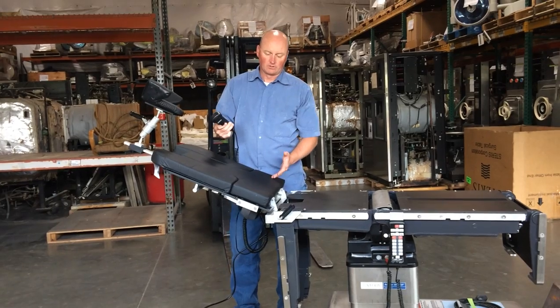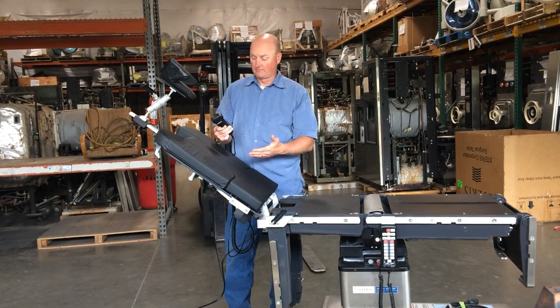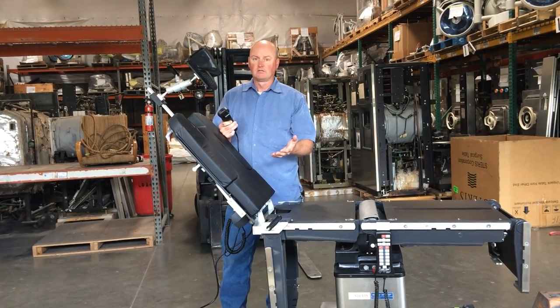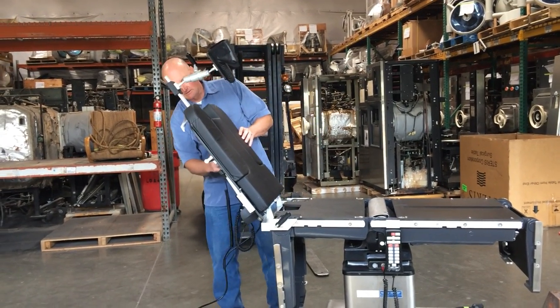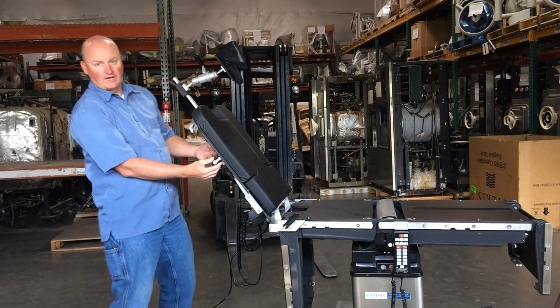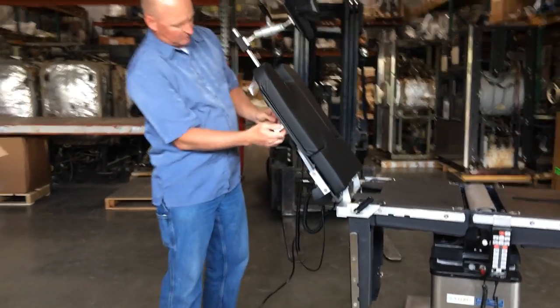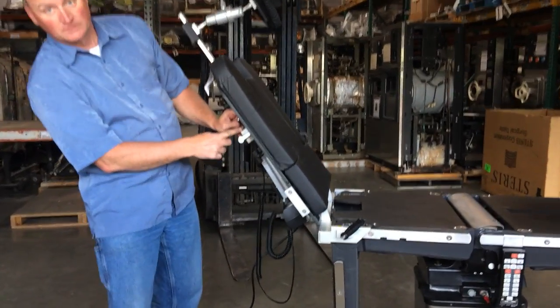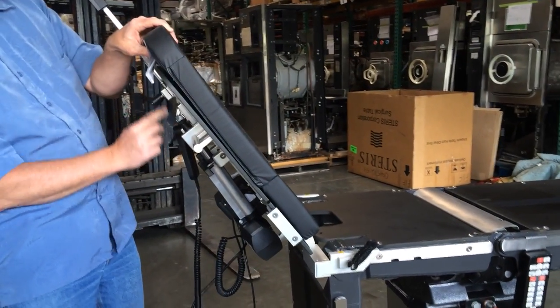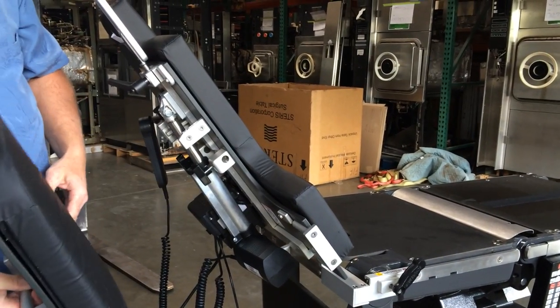The things you're going to want to know about mounting it and positioning it are pretty straightforward. You mentioned you already worked with a beach chair, so you know that these shoulder sections just break away. There are little pull tabs on here if you want to have a peek — you just basically pull this up here and that releases this positioner. There's a little clip here and one here; you pull this and it'll just break away.